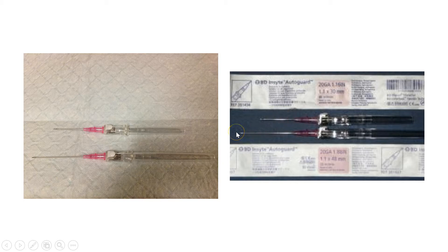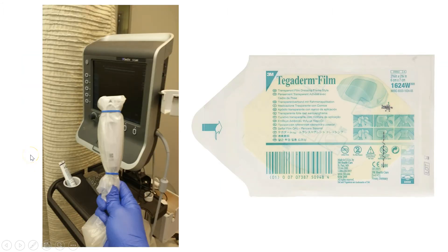Additionally, you'll need an ultrasound-guided IV catheter. Regular IV catheters come in 30-millimeter variety. The ones you'd want to use for ultrasound are typically 48 millimeters — or 1.88 inches — which is almost one and a half times the length of a regular catheter. The reason we care about that is we want to make sure there is enough depth to get to the deeper veins.